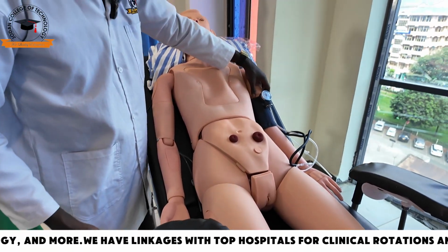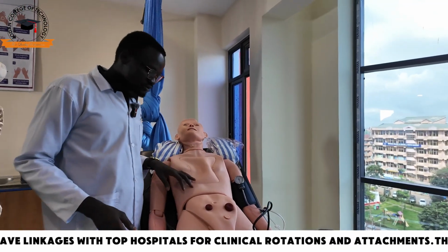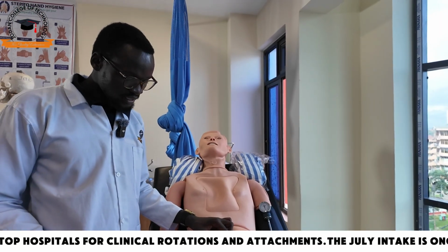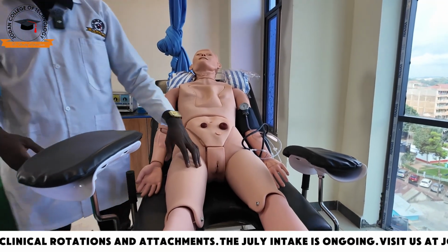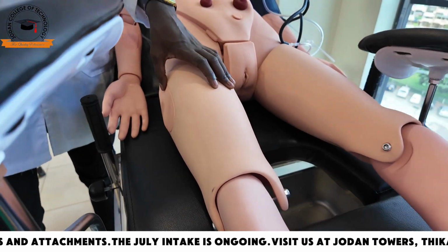You can also use it to perform monitoring of blood pressure. You can also use it to perform stoma care, more so in those patients who have undergone colon surgeries. You can also use it to insert a catheter. You can also use it to give intramuscular injection in the vastus lateralis muscle.